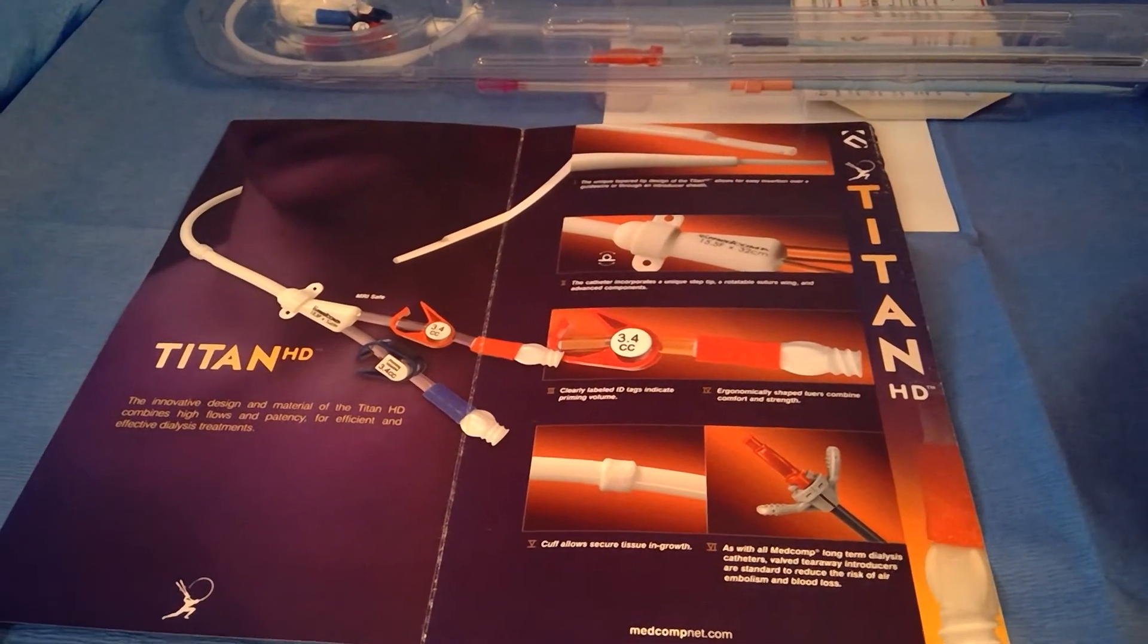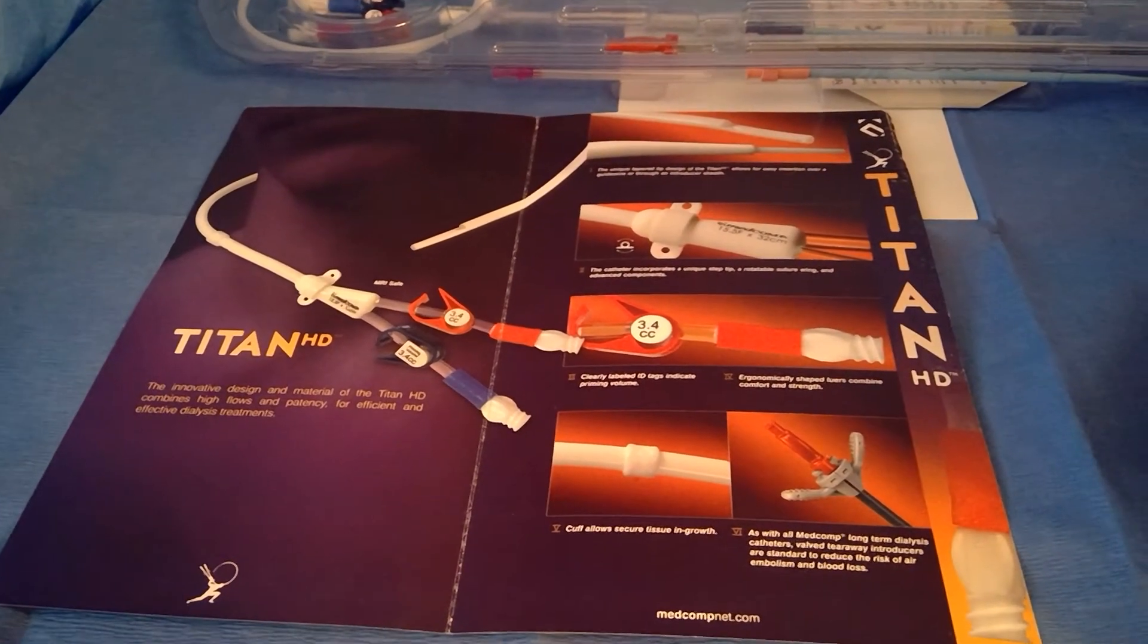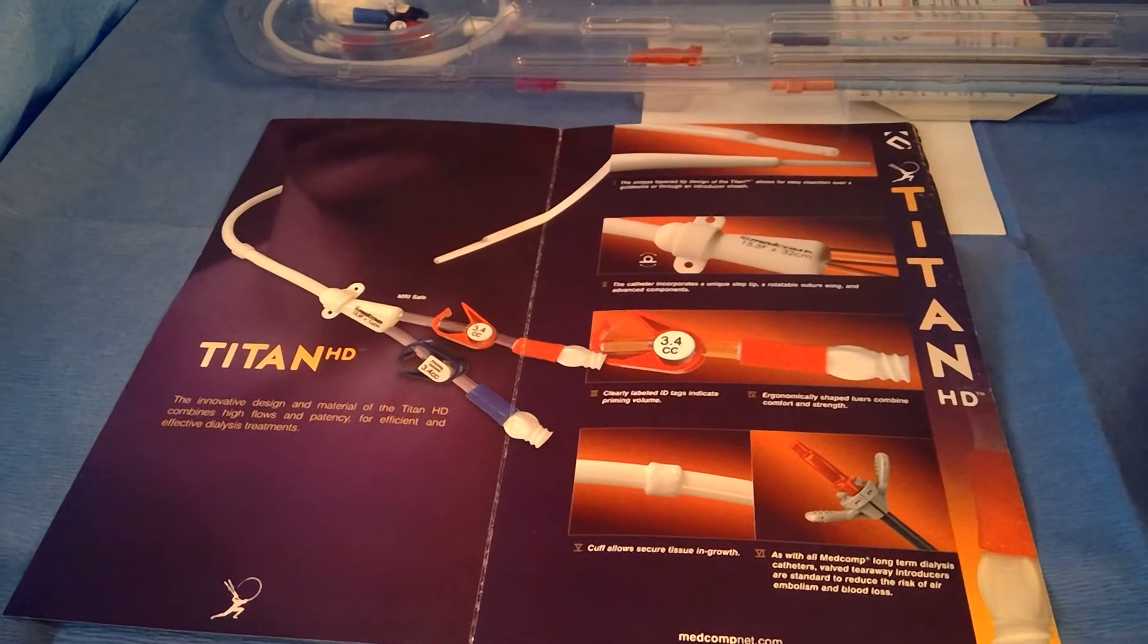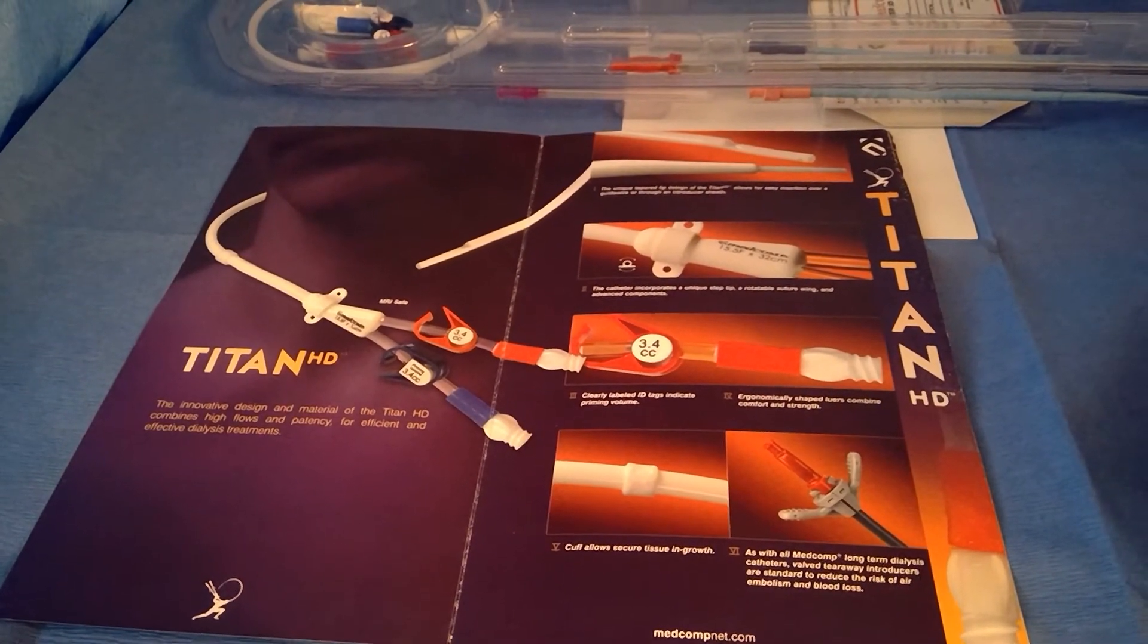Hi everyone, I want to do a video demonstration and talk about the Titan long-term dialysis catheter from Medcomp.